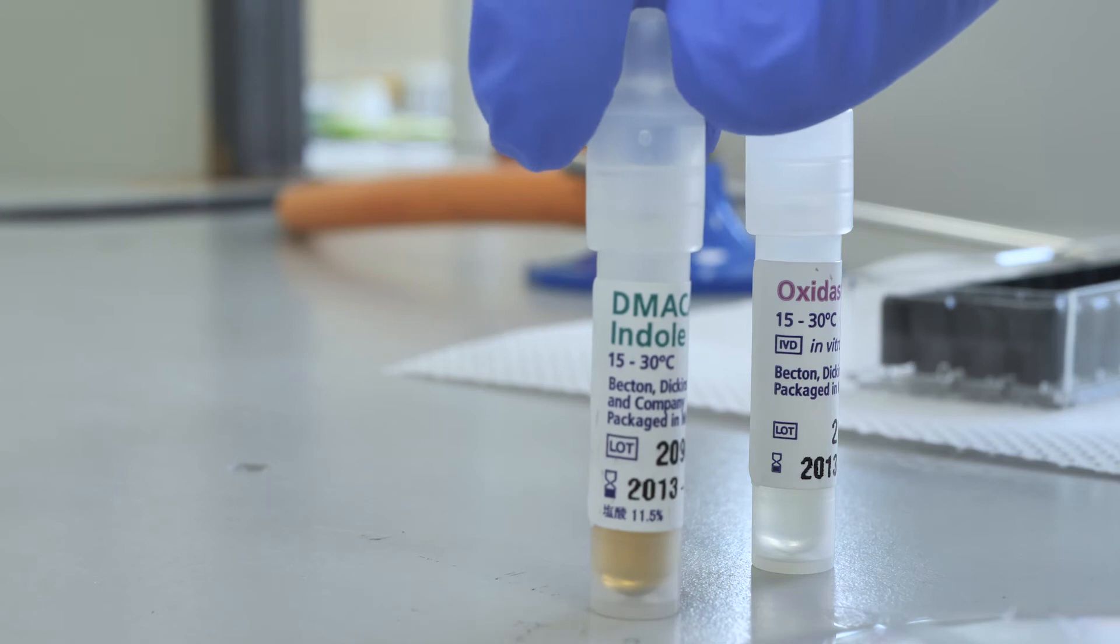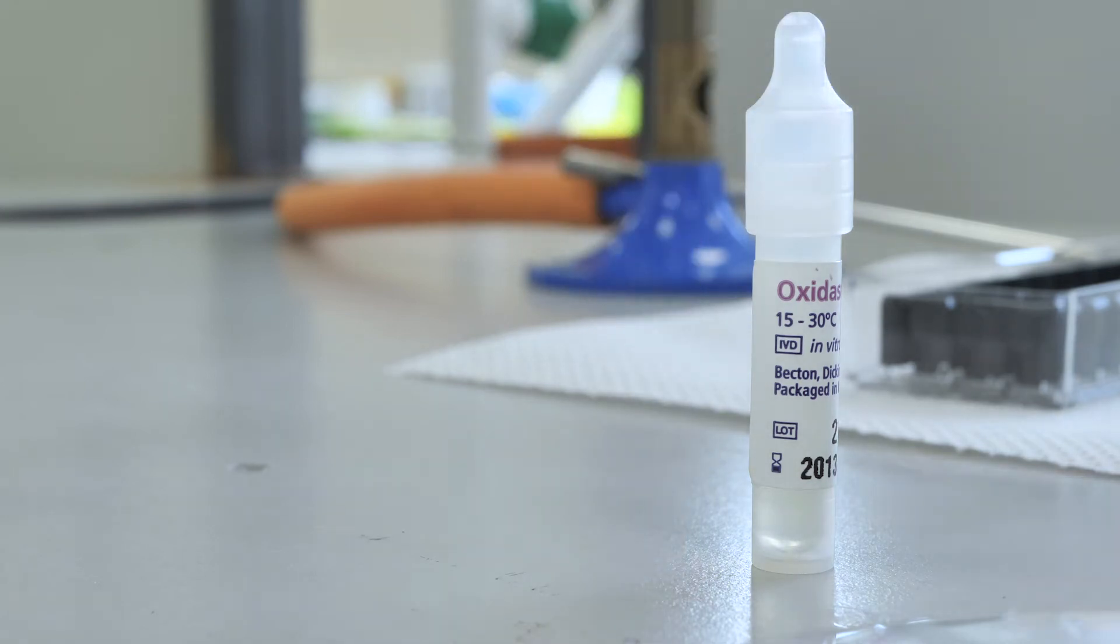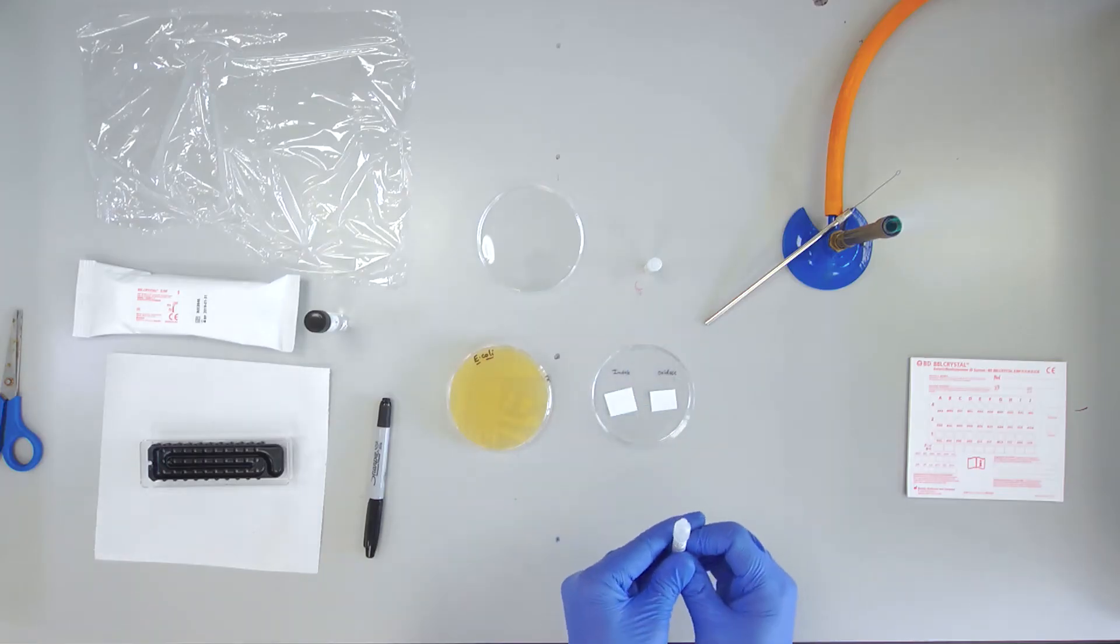It may be necessary to open the vial by pressing the outside of the plastic vial to break the glass ampoule inside.